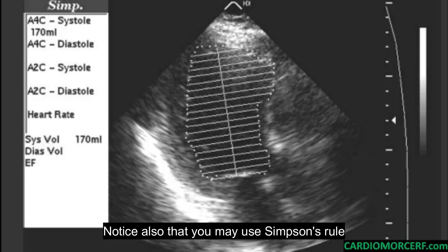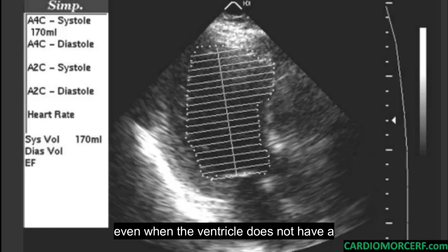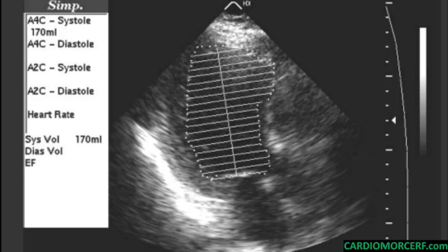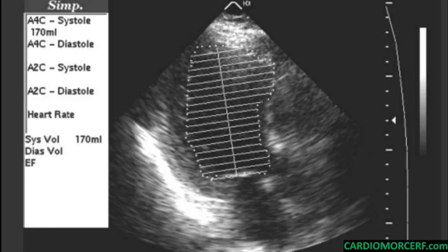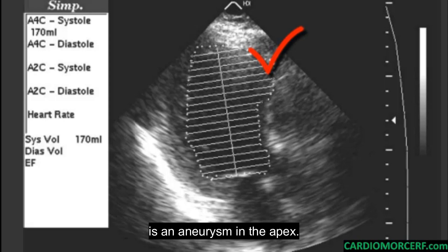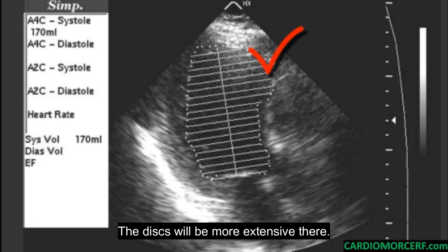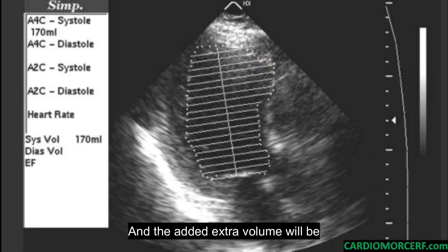Notice also that you may use Simpson's rule even when the ventricle does not have a known geometric shape, since it does not use a geometric formula to get the volume. Like in this case, for instance, where there is an aneurysm in the apex — no problem, the disks will be more extensive there, and the added extra volume will be considered.